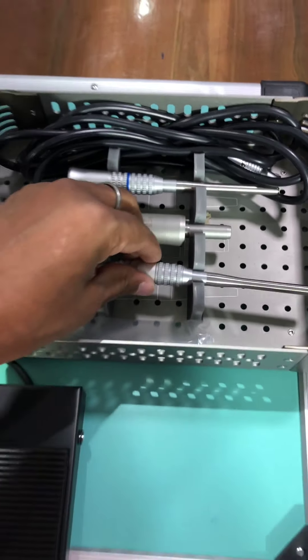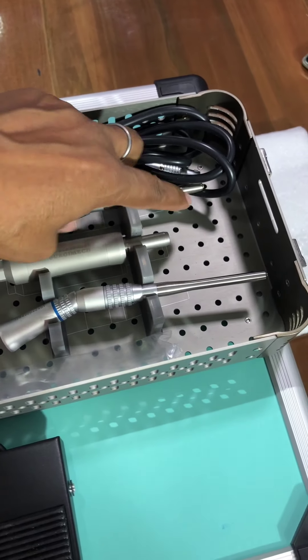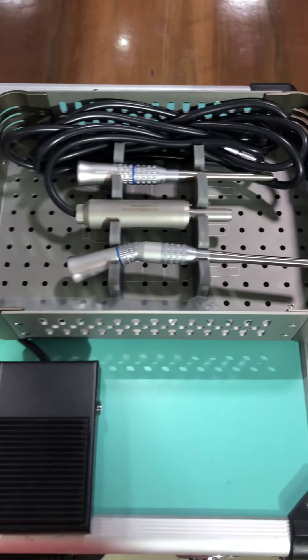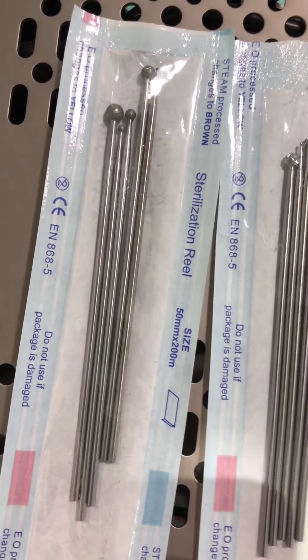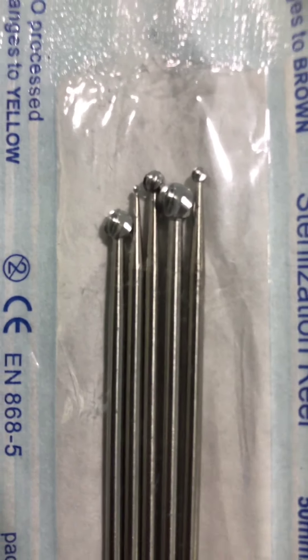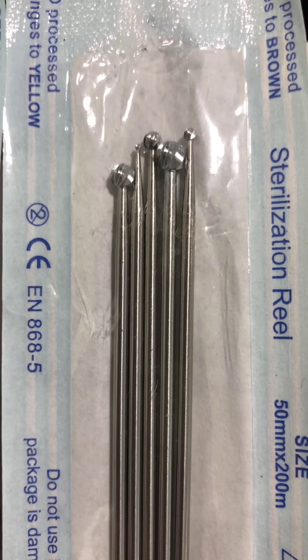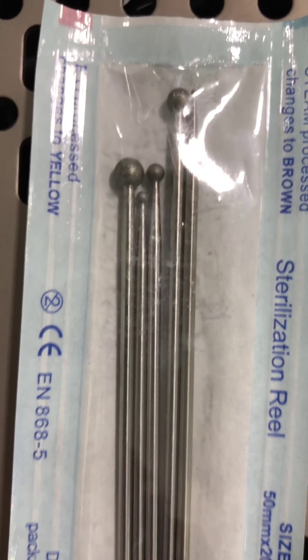This is an angular. This is a long handle — a spine handle. This is a diamond burr, and this is a cutting burr. There are 5 sizes, 1mm to 5mm. Same in diamond burr.